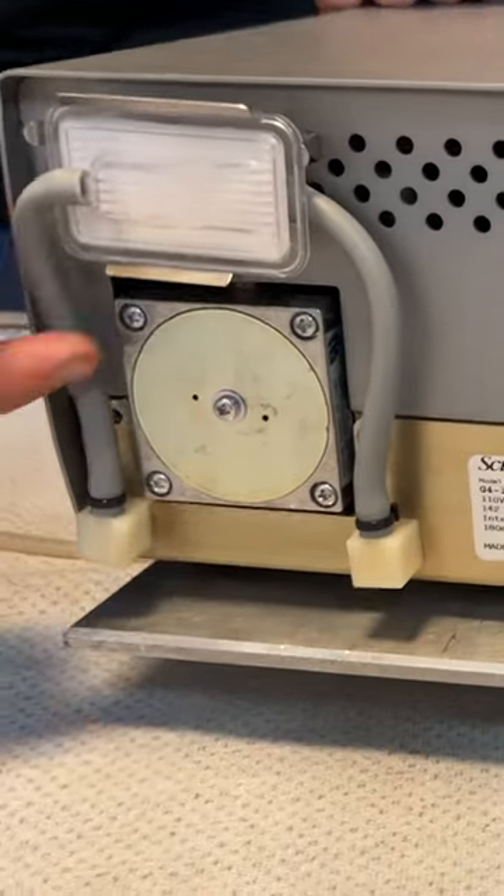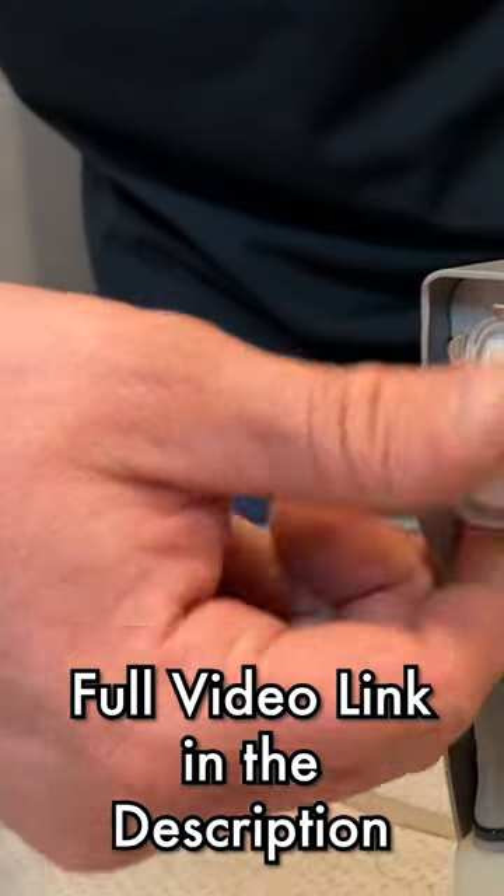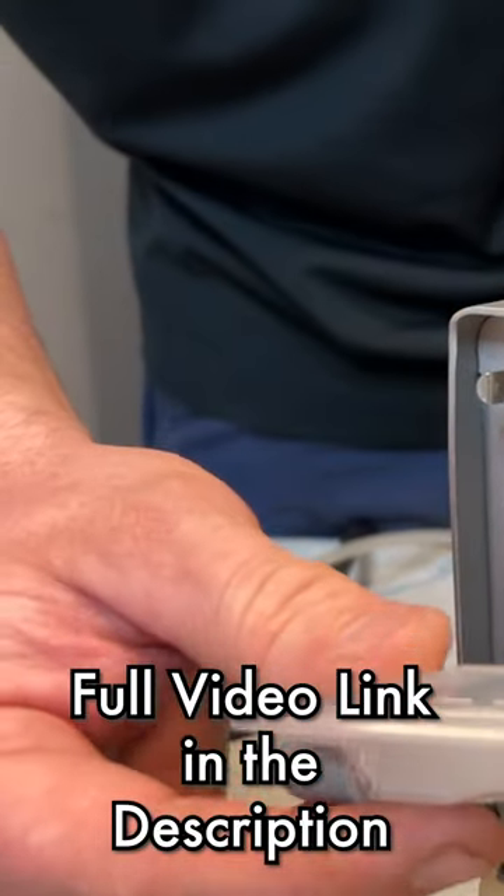When you get to the back, you have a biofilter. This biofilter is in a small bracket. If you push down on the bracket, that biofilter should pop out.